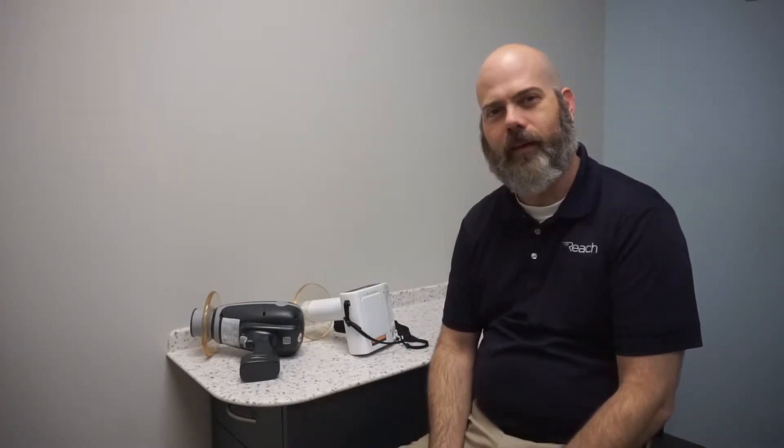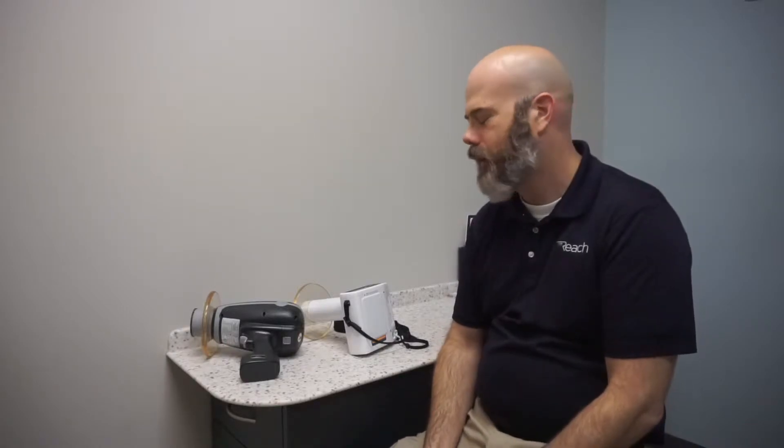Today's Reacher Tip of the Day has to do with handheld x-rays and some tips and tricks on getting good images with them. A lot of folks have handheld x-rays in their office.